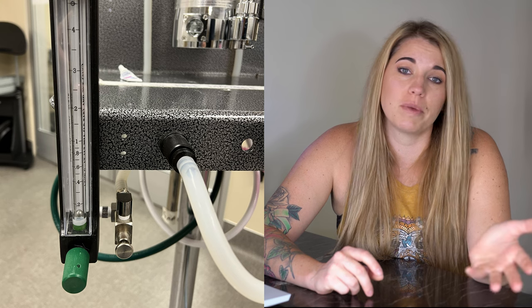The oxygen flow meter is a knob most of us aren't taught much about — we're told to leave it on 2 liters per minute. Really, that's not necessarily true. When determining what to set your oxygen flow meter at, you need to be aware of how fast you need to be running oxygen through the type of anesthetic circuit you're using, and also think about what that patient's oxygen demands are. A safe estimate of oxygen consumption in the dog and cat is somewhere between 4 to 7 mils per kg per minute.